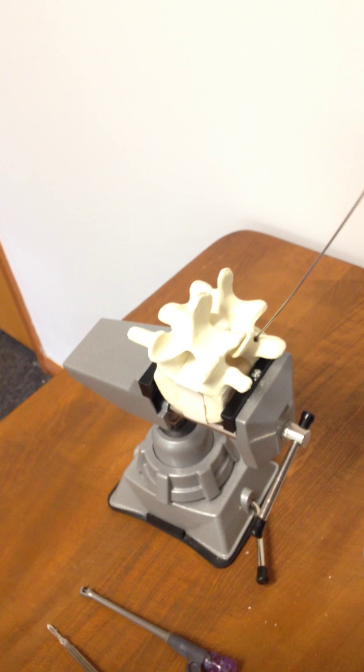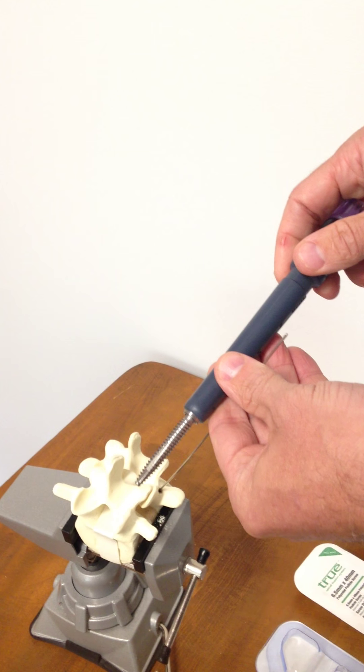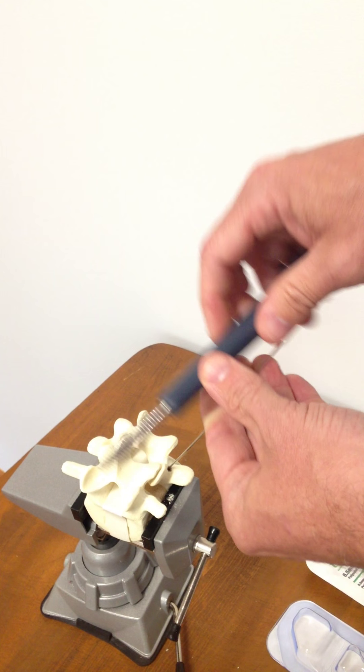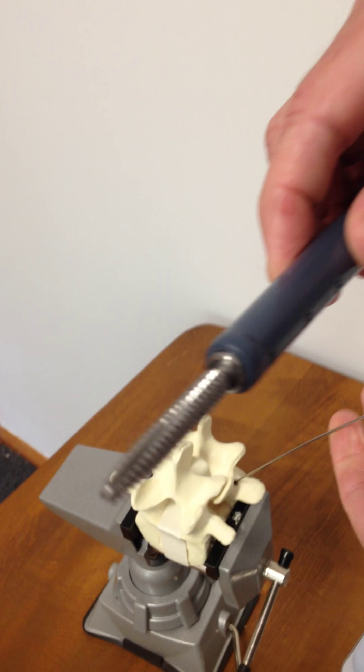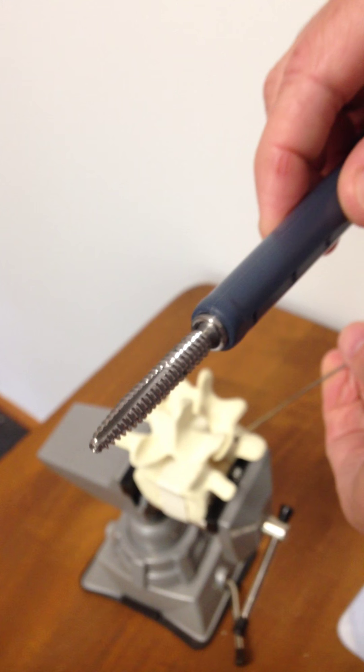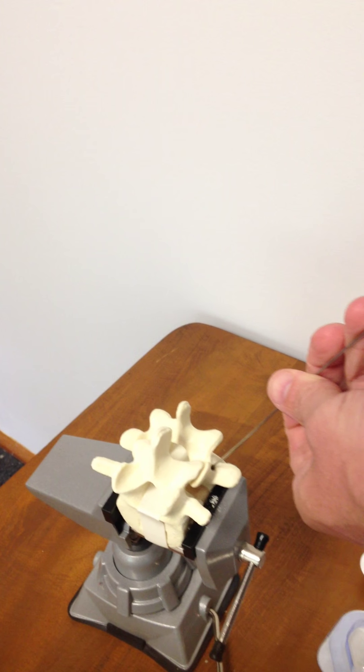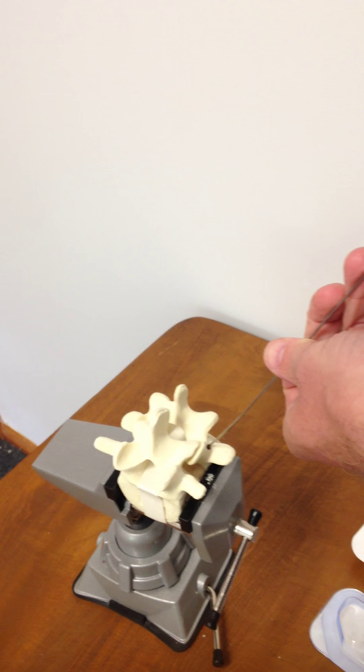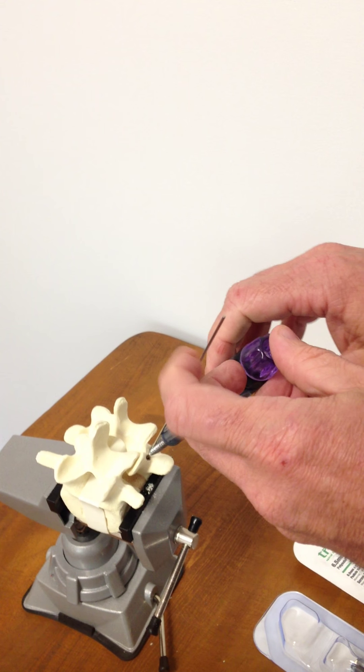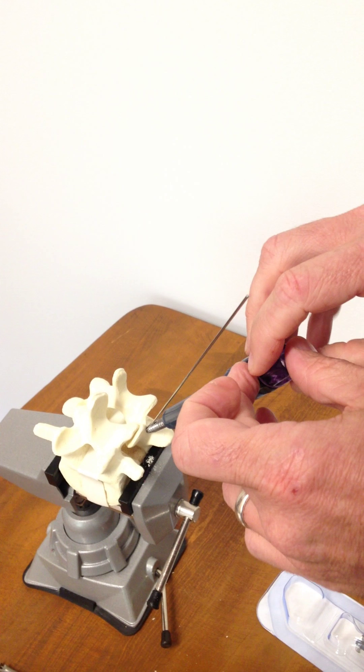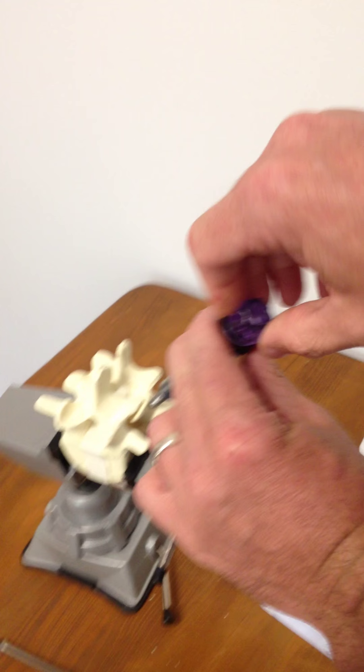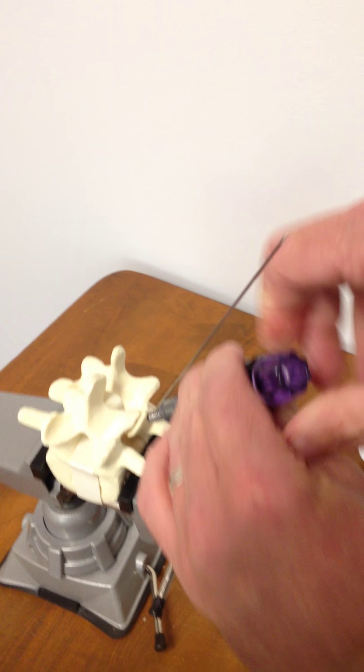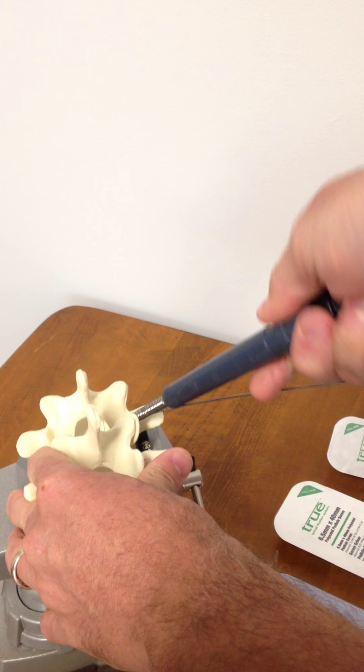So with the guide wire in place, we have side-loaded cannulated screws. As you can see here, our screws come with a cannulated hole and an off-axis groove, which allows for simple delivery of the screw down to the pedicle. And what this allows is to initiate the screw placement. Two or three full rotations really allows the screw to get in place.